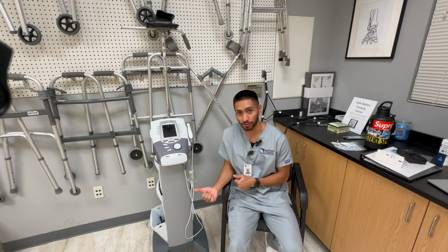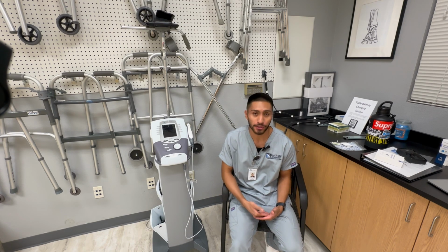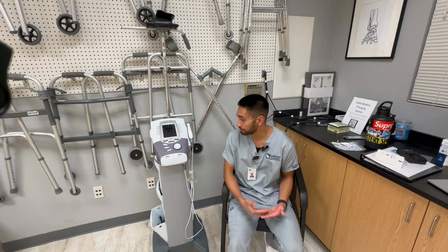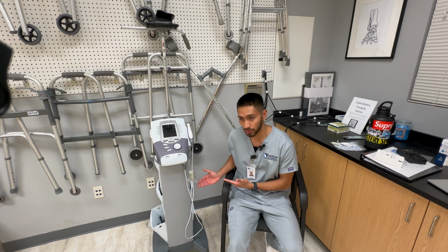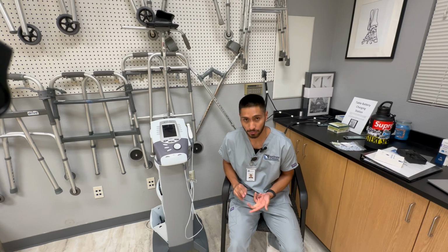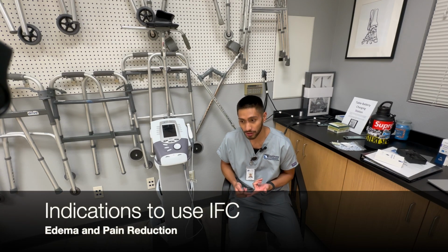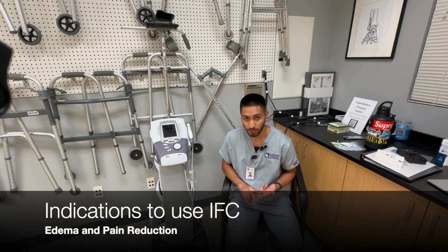Today we're going to be working with the Chattanooga device for interferential current, describing what it is, indications that we would use, precautions, contraindications, the whole gist of why we use an interferential device. So to get started, we'll talk about indications, precautions, and contraindications, as to why we would use it and why not. The indication is mainly edema reduction and pain reduction. It can be used for both.